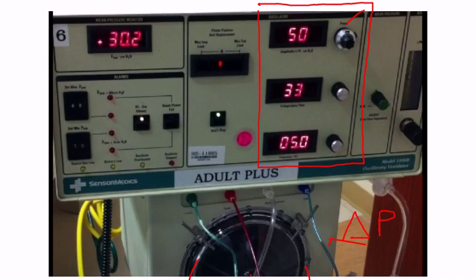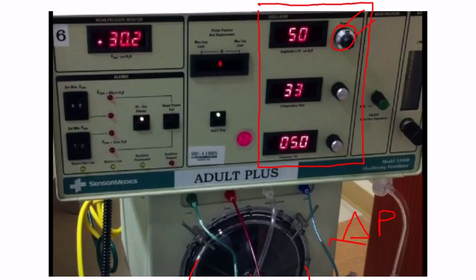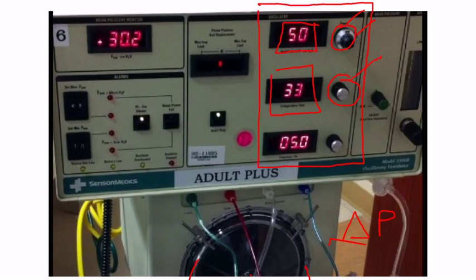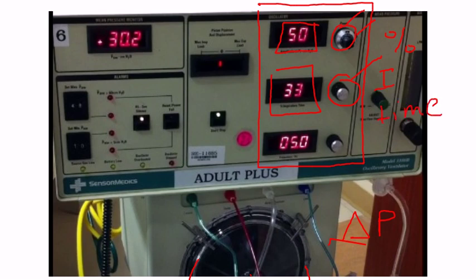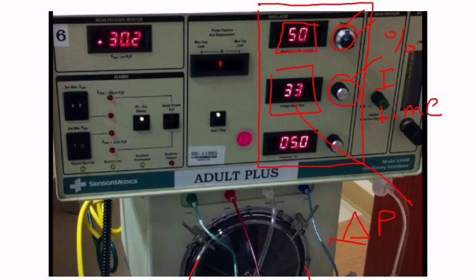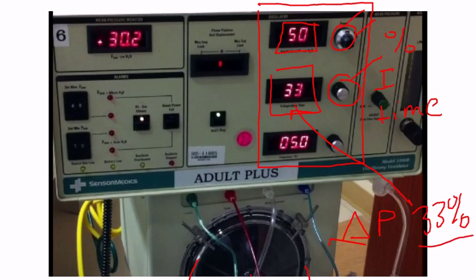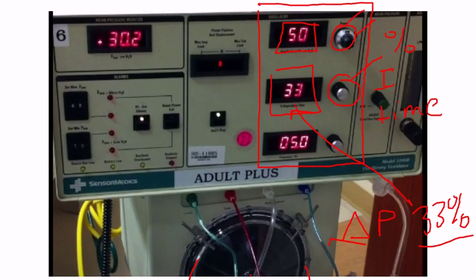Underneath the power knob, we have my delta P control — this is where I increase or decrease my delta P, and I can monitor that value here. Down below that I have another knob for my percent I-time. That's how I increase or decrease my I-time. Here we have 33%, which is actually fairly standard in a lot of adult patients. 33% I-time gives us an I:E ratio of 1:2, which is a normal I:E ratio, and obviously I can increase or decrease that as needed.